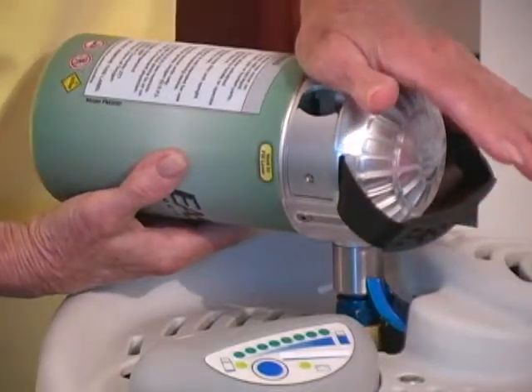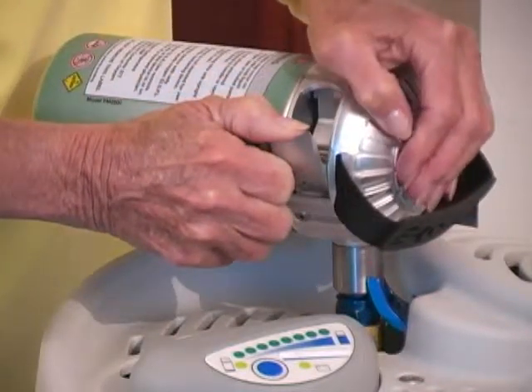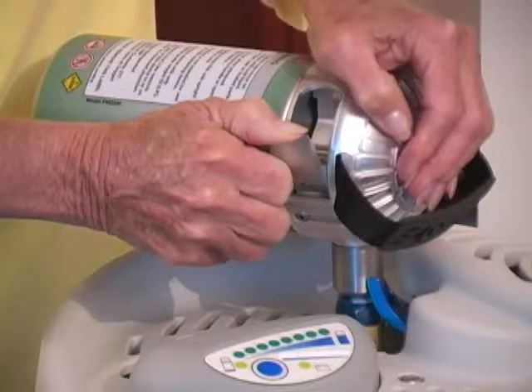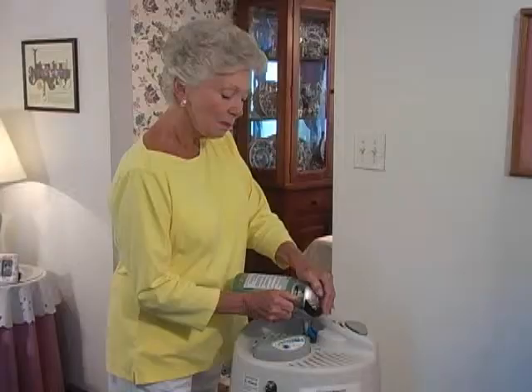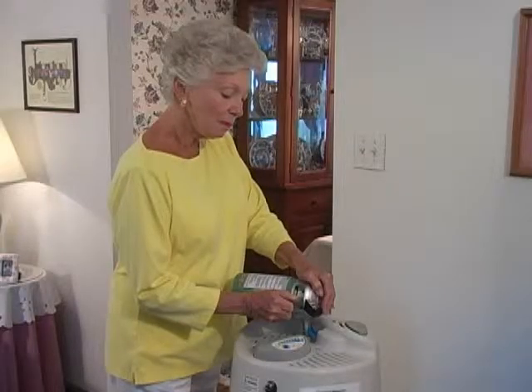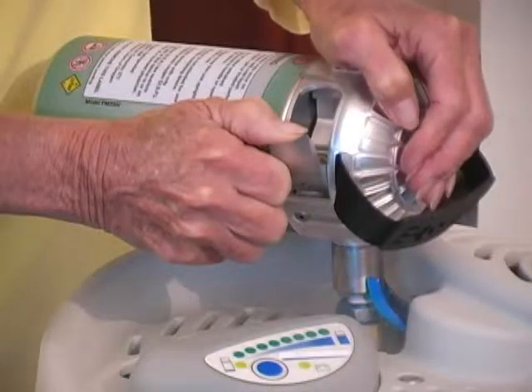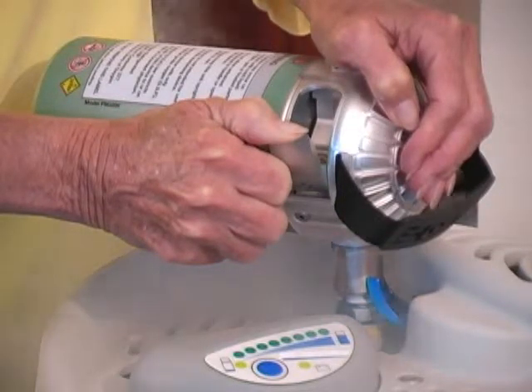Connect the portable unit and reservoir by pressing down to the fill position. Hold the portable unit in the fill position and pull the vent to fill lever to the open position. You'll hear a hissing noise. As you fill the portable unit, press down lightly on it with one hand to keep it steady. When you notice a change in the hissing noise and thick white vapor coming from the portable unit, the portable unit is full.